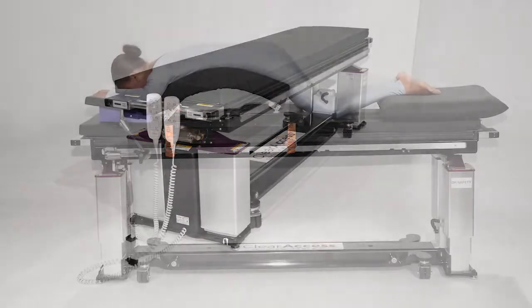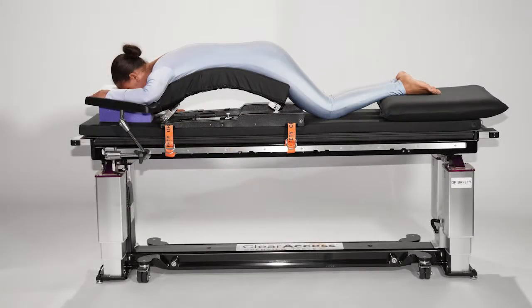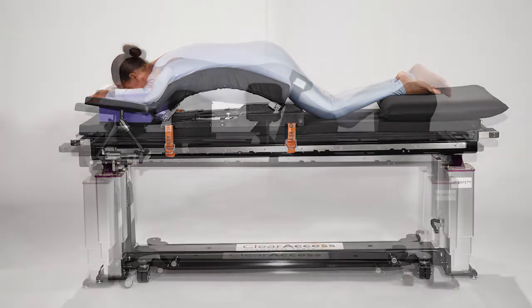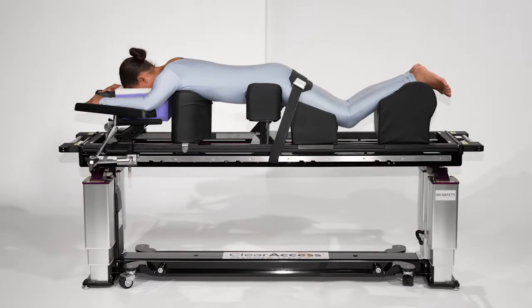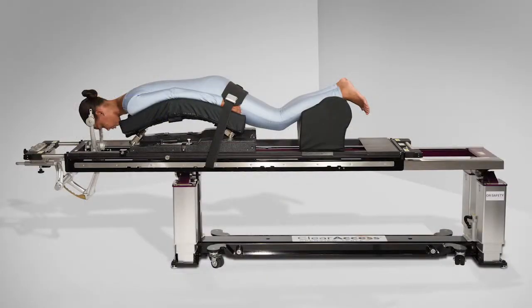Importantly, the ClearAccess table is the only spine table on the market that has three pre-set configurations, each configuration organized in response to customer feedback and intended to deliver the right amount of equipment to fit specific types of clinical practices.